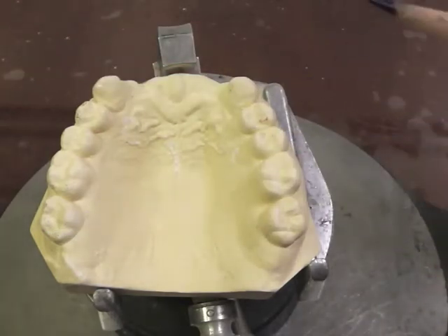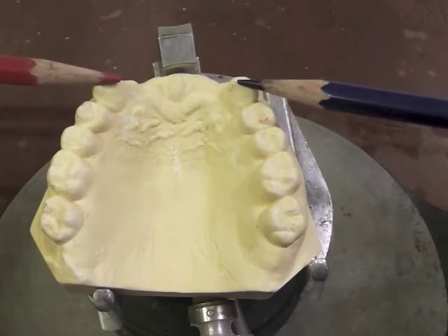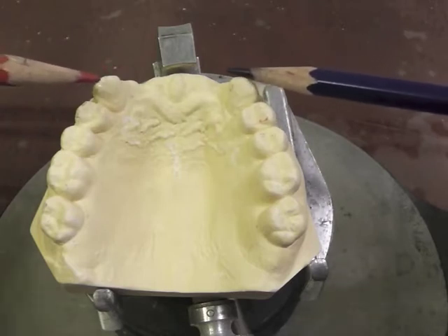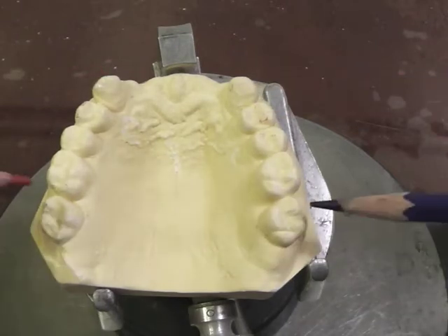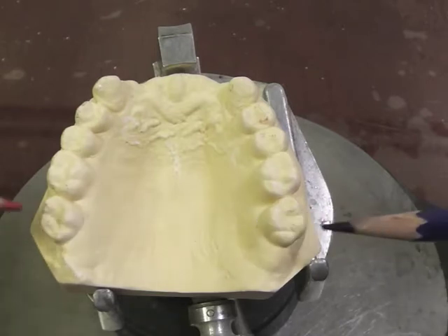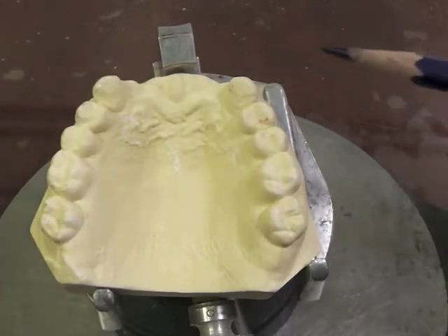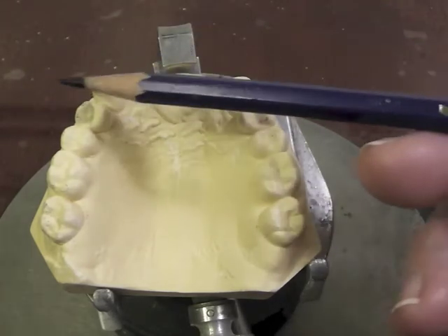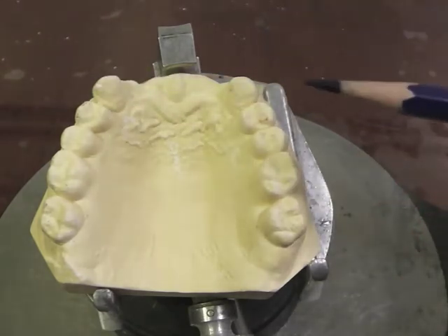That tells us we're going to be placing a clasp assembly either on our canines, which puts the direct retainer right in front of the fulcrum line, and we'd also like to place direct retainers on the most distal teeth from the fulcrum line. That would be our ideal design, but we also have to consider aesthetics for the patient who has to wear this contraption.